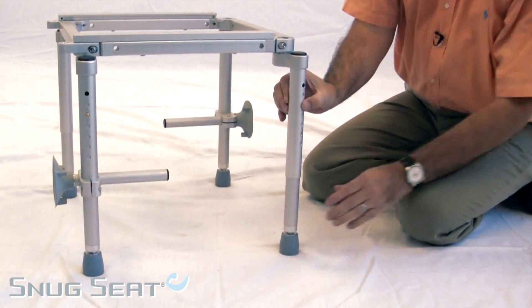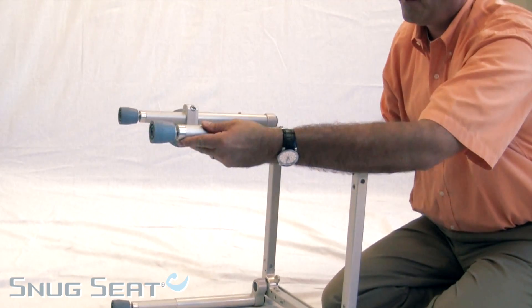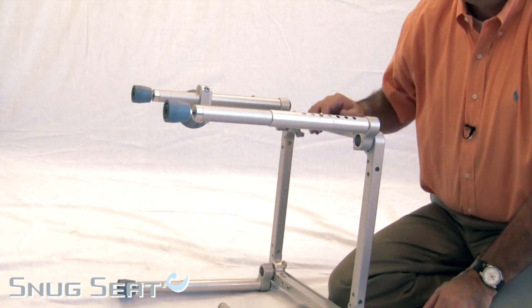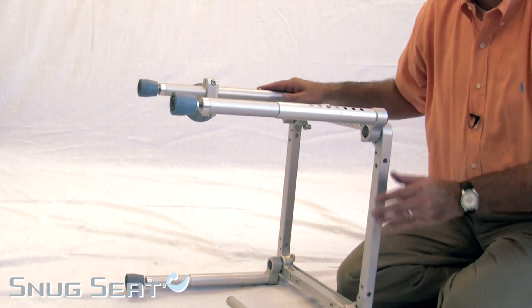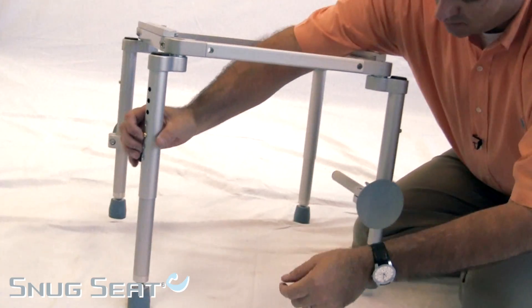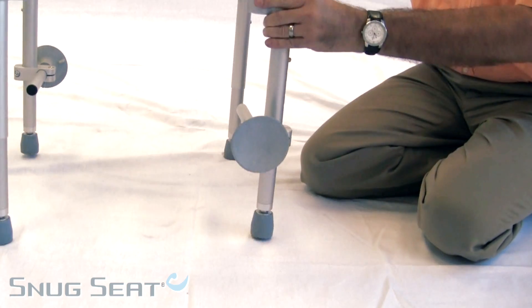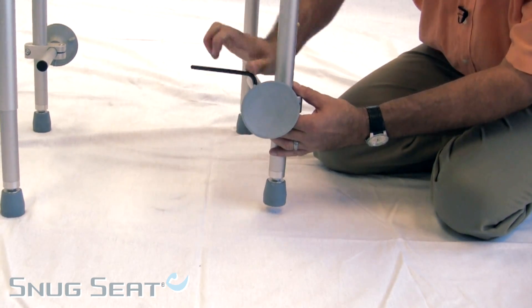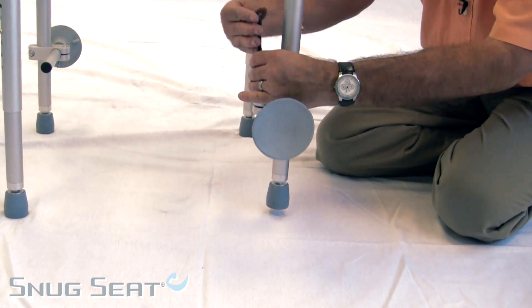There is also height adjustment via both a pin and a movable foot, allowing for proper placement in the tub to avoid any tippiness. Additionally, the tub slider tub base has an adjustable depth, height, and angle plunger for increased stability in large tubs.